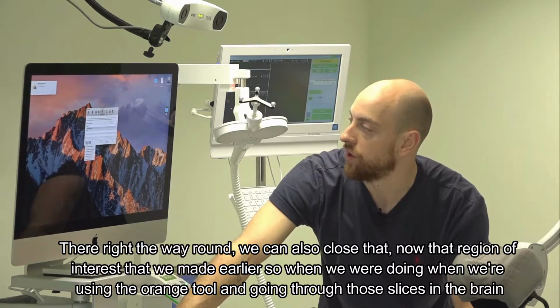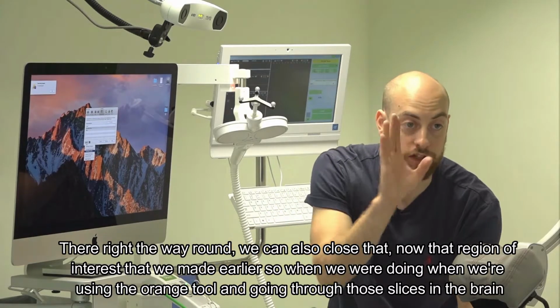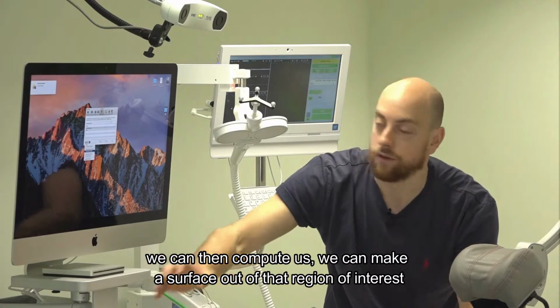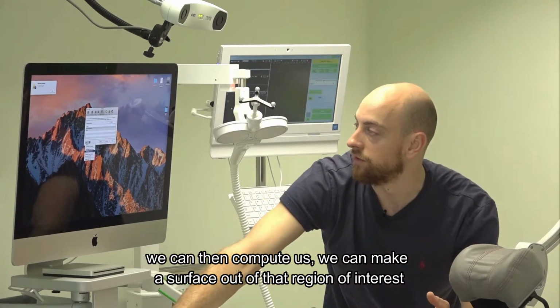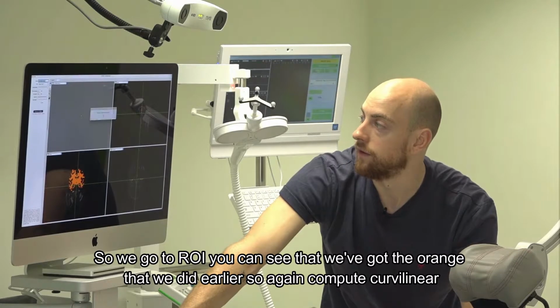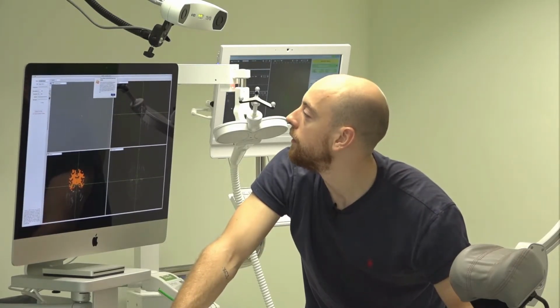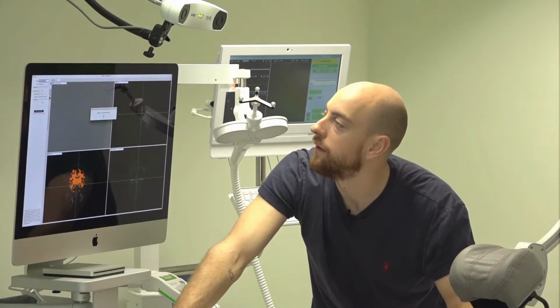Now that region of interest we made earlier, when we were using the orange tool and going through those slices in the brain, we can make a surface out of that region of interest. If we go to ROI, you can see we've got the orange that we did earlier. So again, compute curvilinear. Bear with me, I don't think we've done enough in the previous step.